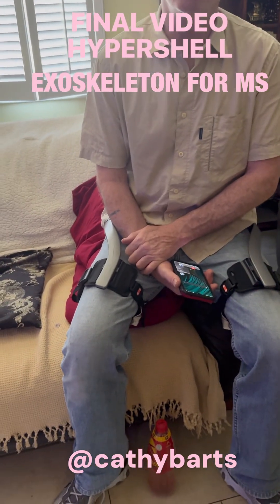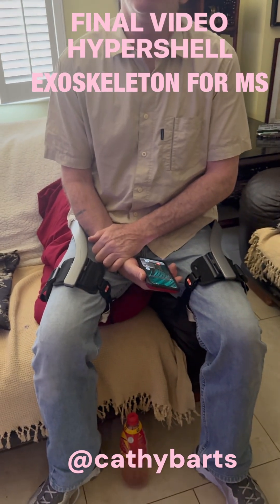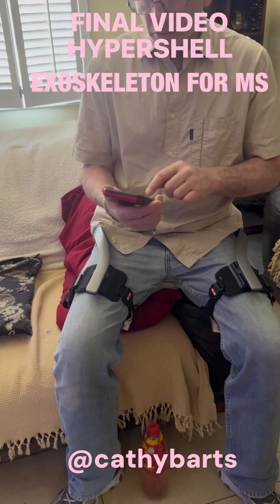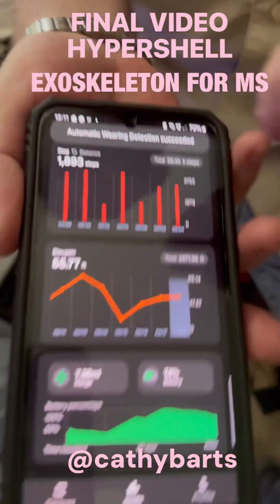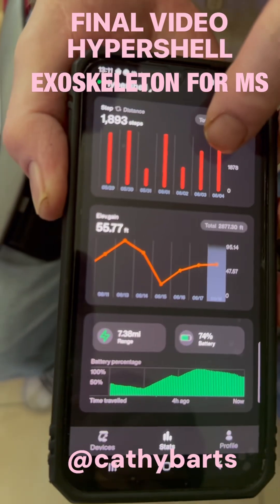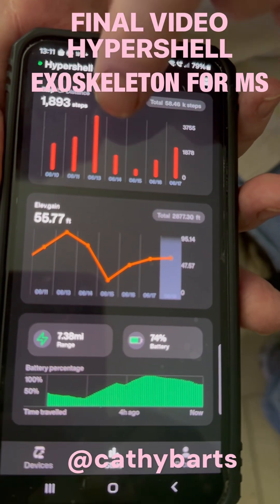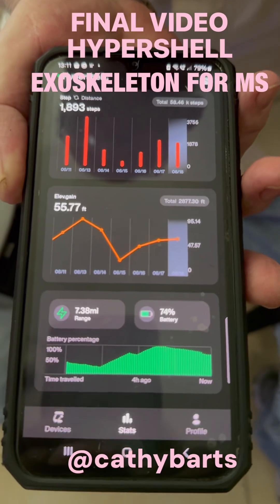As you've seen from previous videos, plus all the YouTube content out there with everyone being happy and doing 65 miles — I will now show you my routines from the start. That's day one at the top there, and as I scroll through you will see there are drop-offs. Why are there drop-offs? Because I'm having bad days and bad days of pain.